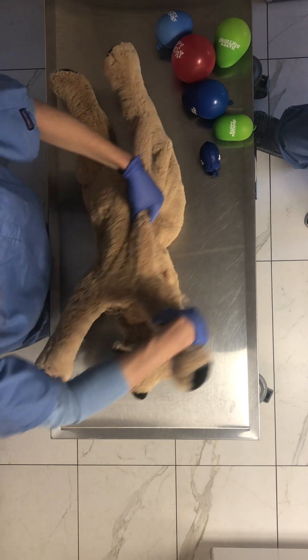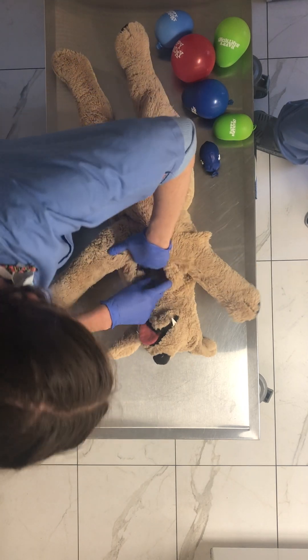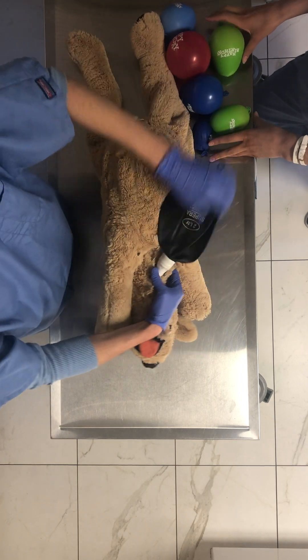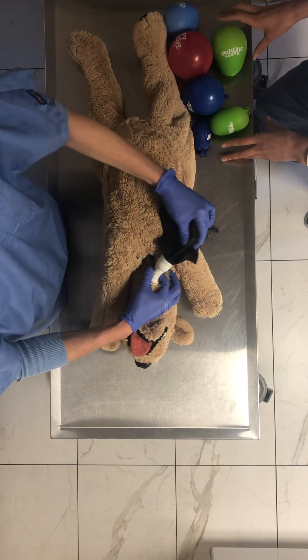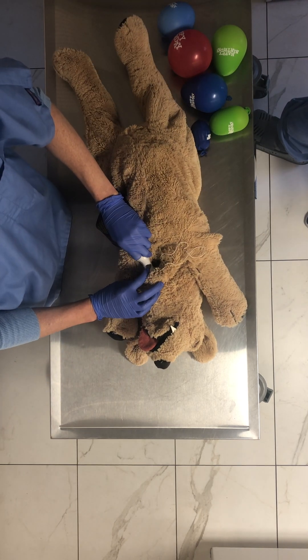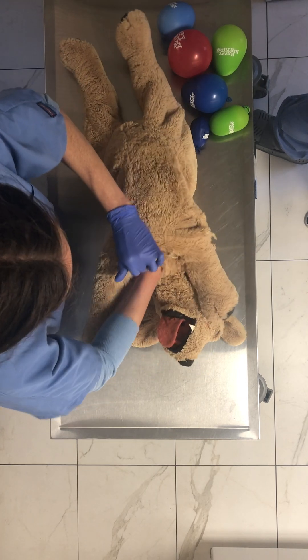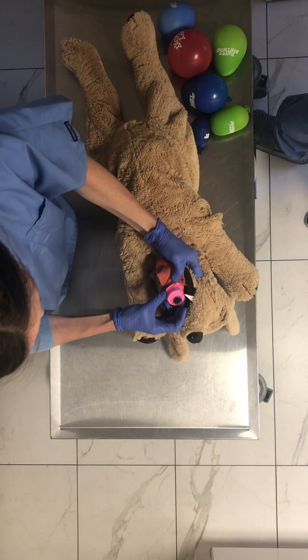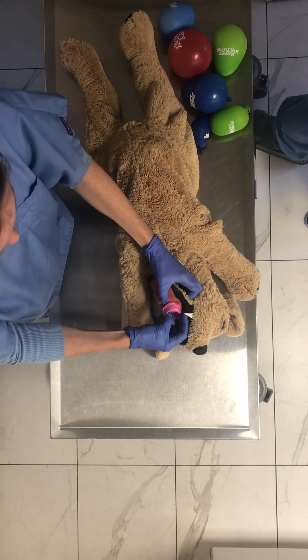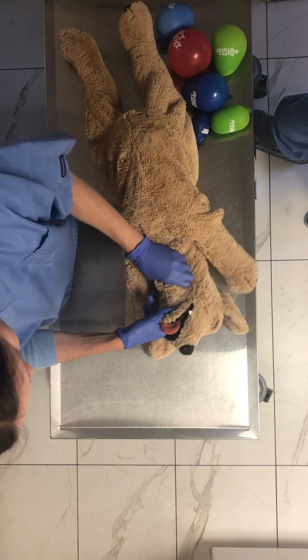So I might as well show his setup. We've got an IV bag hooked up to some clear rubber tubing, and then that tubing goes here — that's his larynx. It's just rubber hose from the hardware store.